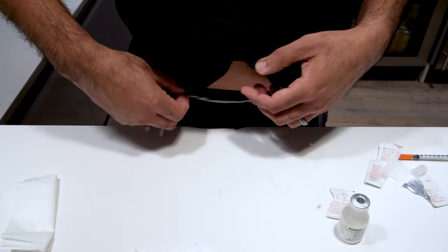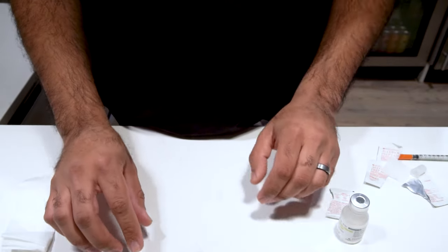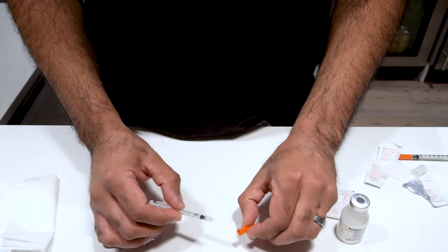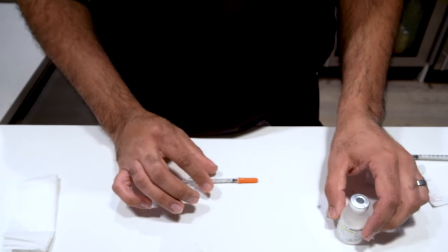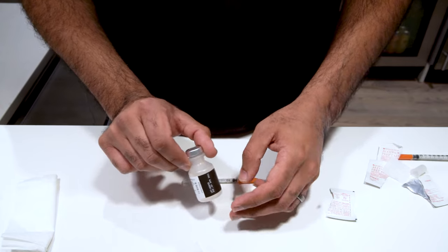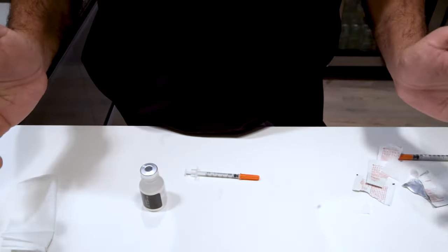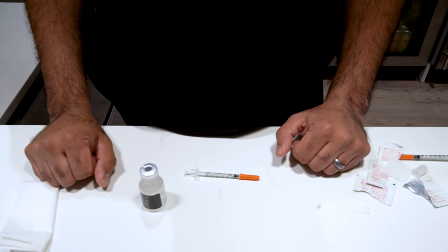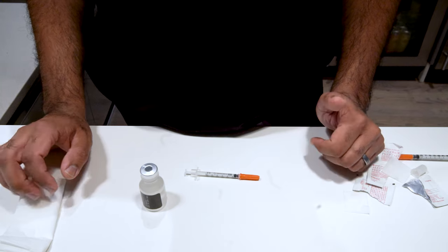That's all we have to do to take our injections. But cleaning up is also very important. Number one, make sure you put the cap back on your needle, dispose of this in a nice safe spot. Take your medication and put it directly back inside the refrigerator so it can stay preserved for as long as possible. And that's all you have to do for your injections, usually on a weekly basis unless we change your regimen to twice a week.